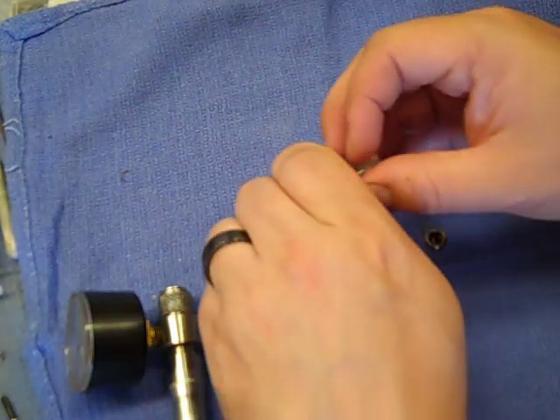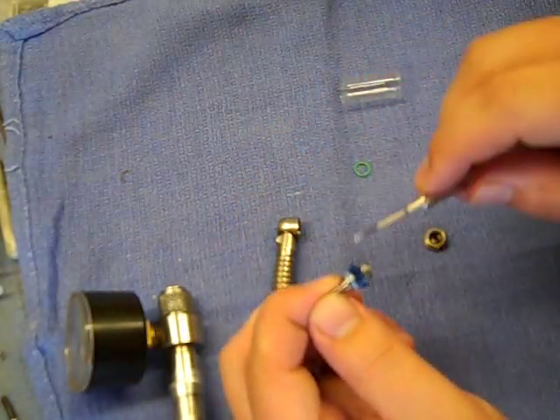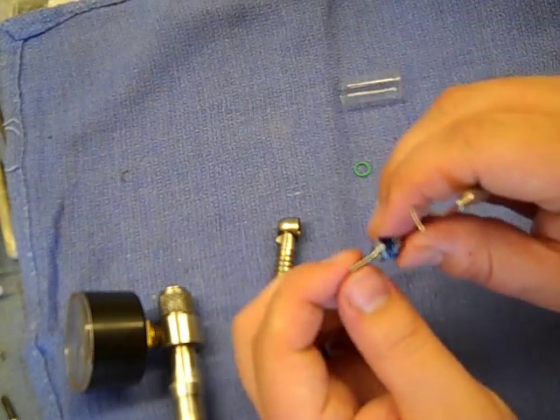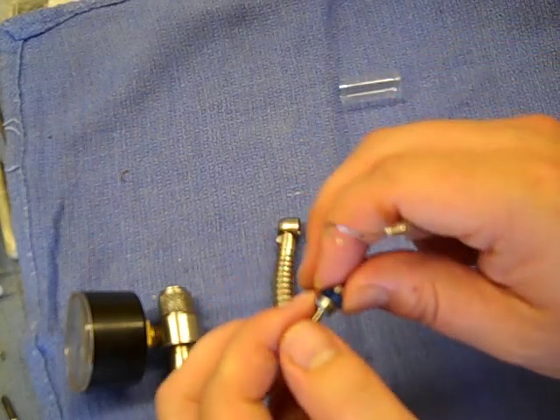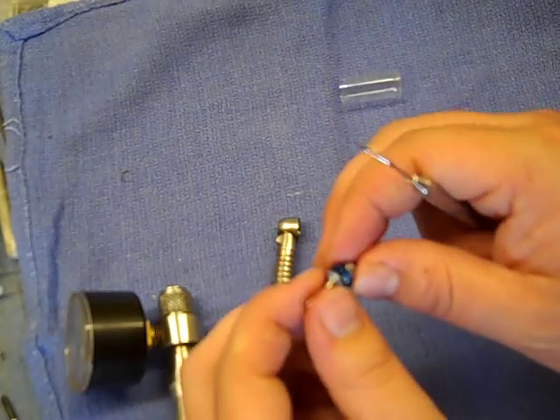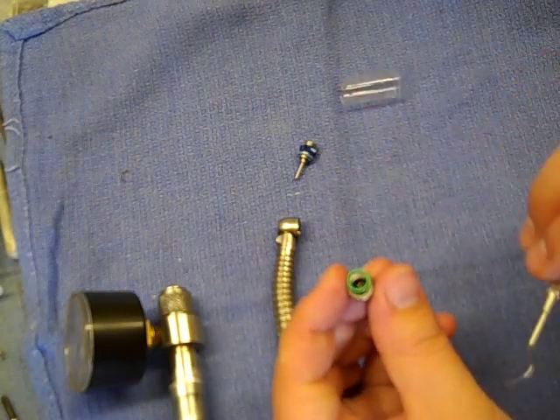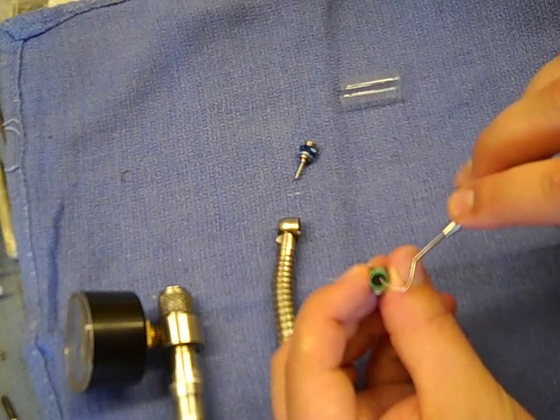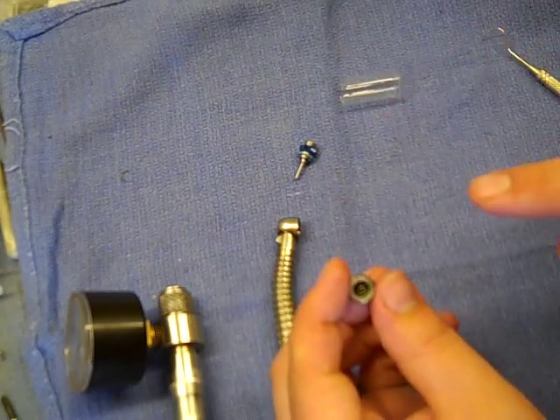Open up the new turbine. We always send the Traditions with a blue o-ring on the flange of the bearing. If it comes off in shipping, make sure to put it back — seat it right over that bearing up against the flange of the front bearing. Then take the green o-ring, which is the one for the end cap, set it on the end cap, start with one end and put it into that groove. Use your explorer or your finger — either works on the end cap — and work it in. It should seat in there fully with no part of the old o-ring left behind.